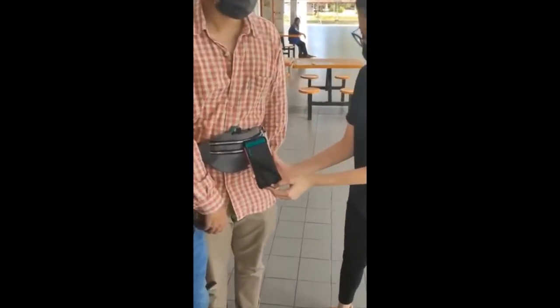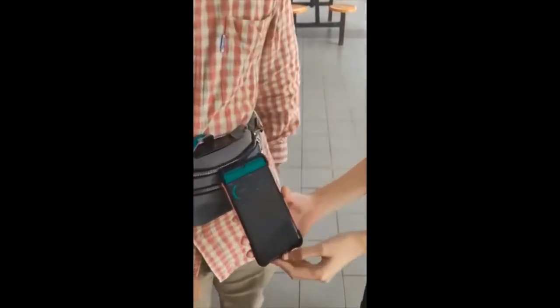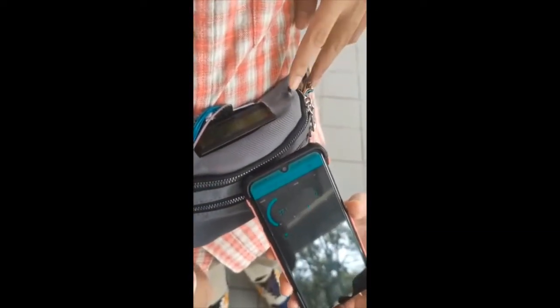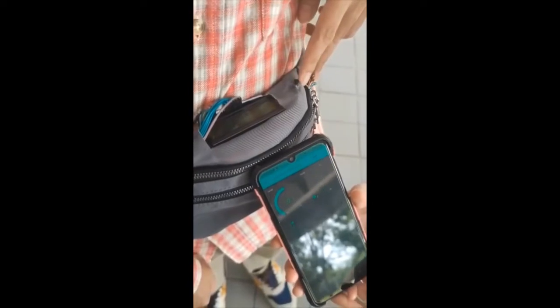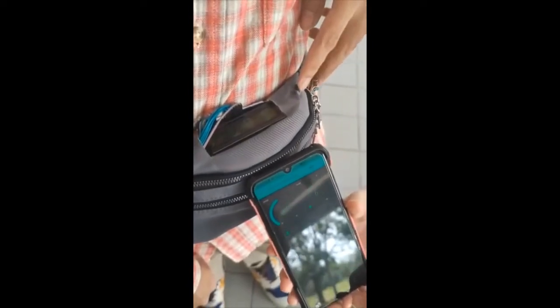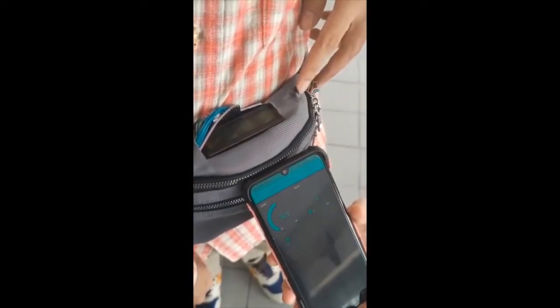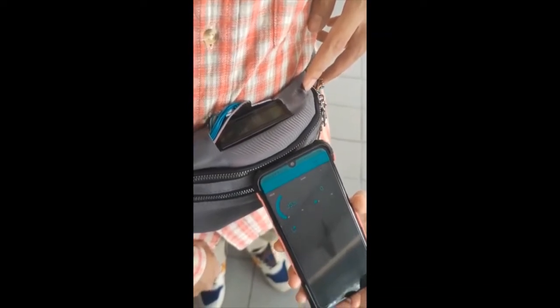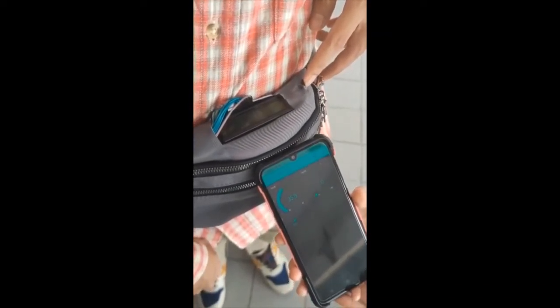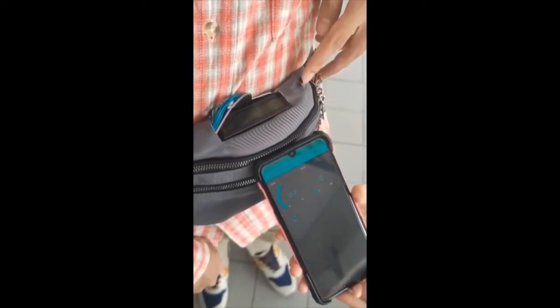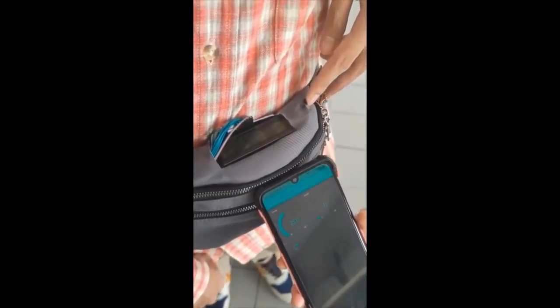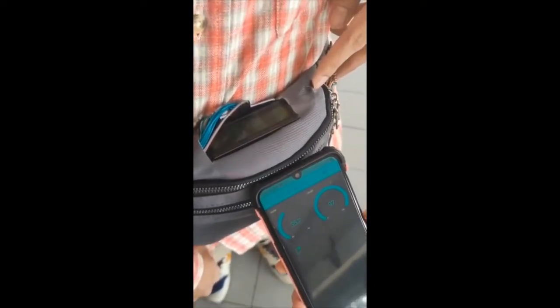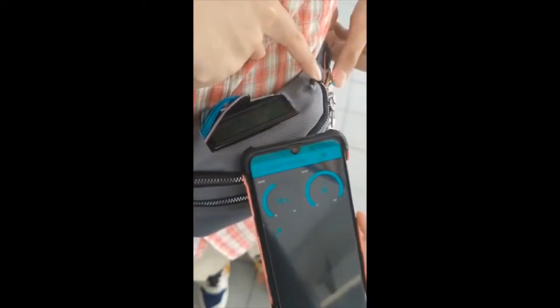We will check how the project will measure and display body temperature and oxygen concentration. When a finger is placed on the sensors, the left side shows the body temperature value, while the right side shows the blood oxygen concentration value.